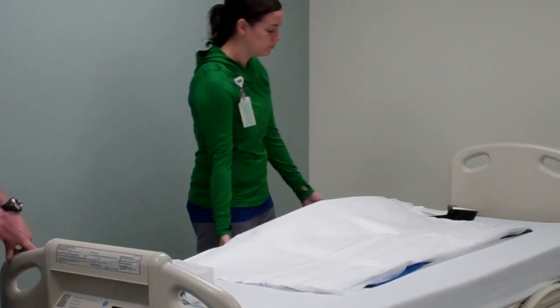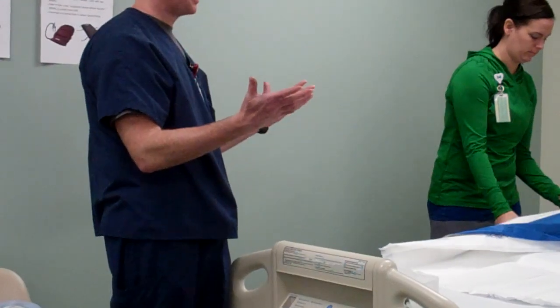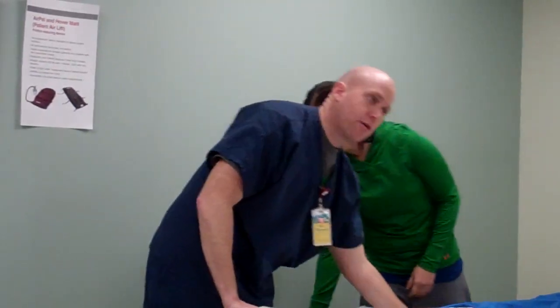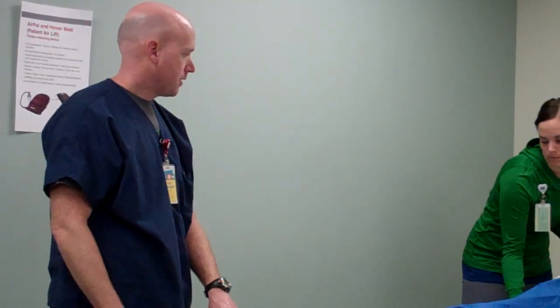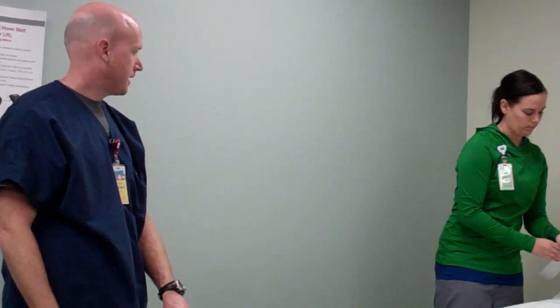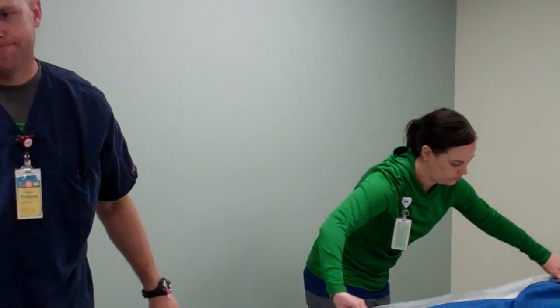These chucks are neat because it's kind of like a wicking thing. As Amber said, if you pour two gallons on there, after a minute or two it's practically dry on top — it's really pretty neat. We've been looking into getting better chucks that provide that, but they are costly. We're talking about hospital-wide, so it's a nice amount of cost. We're looking into improving our chucks here too, and I think you get them from Central Supply, not UHS.